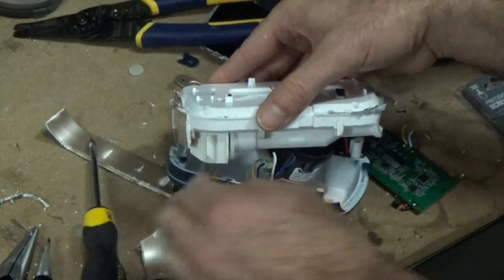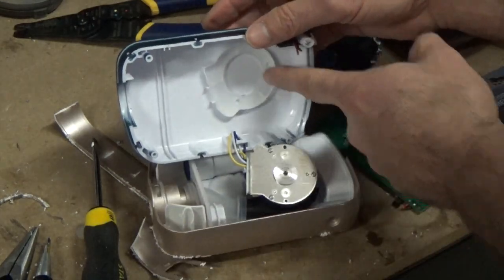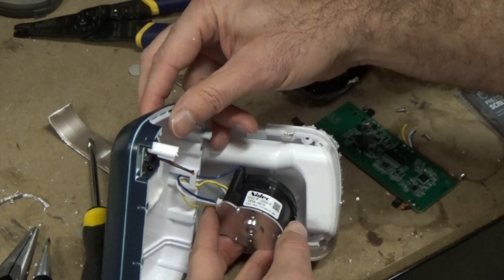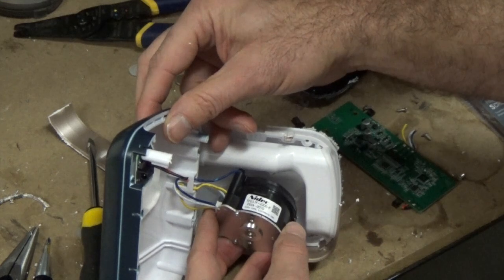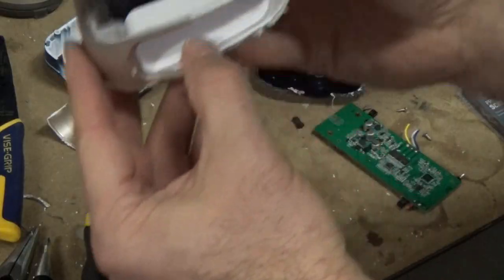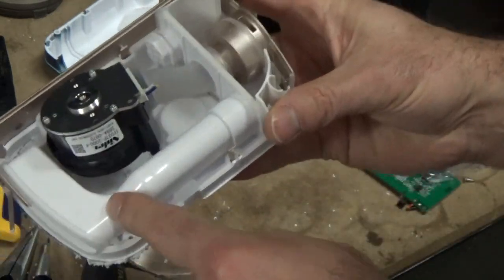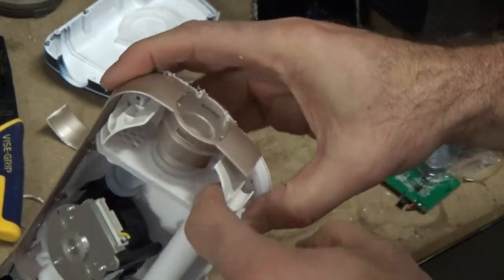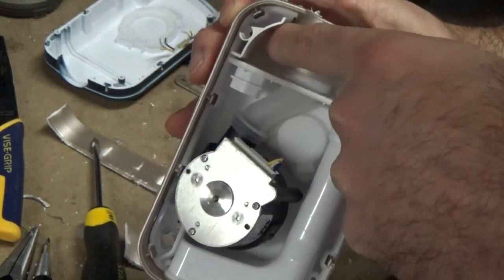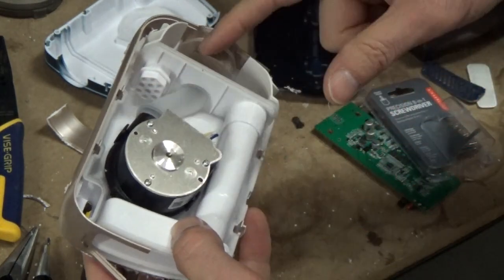Here's what we got, friends. Let's roll that over. So we had this — it's the top housing for the blower. And this blower is a NIDEC TF037F-2000F 269A made by NIDEC Electronics Corporation. So we had this covering on top, the filter was underneath it. We have the air intake running down this tube, coming out into here. What's kind of funky is it's all going around where you plug in the tubing. So it eventually sucks it in over here into this open compartment where it would eventually suck in through the top, goes through the little hamster wheel, shoots out here and blows.